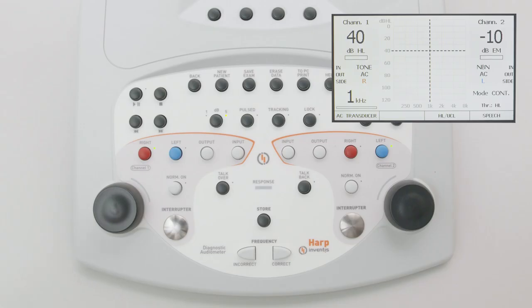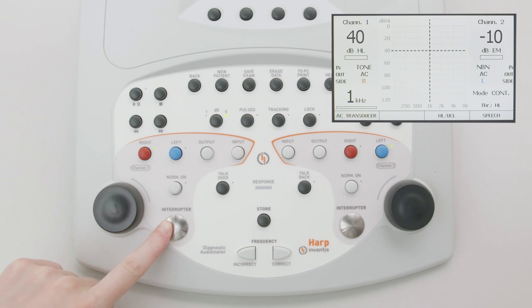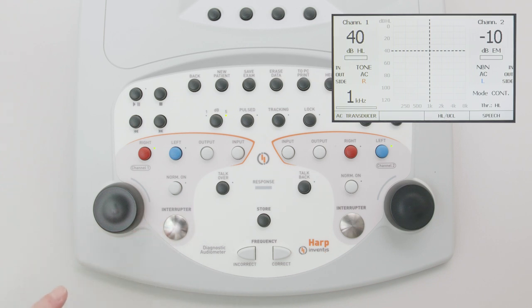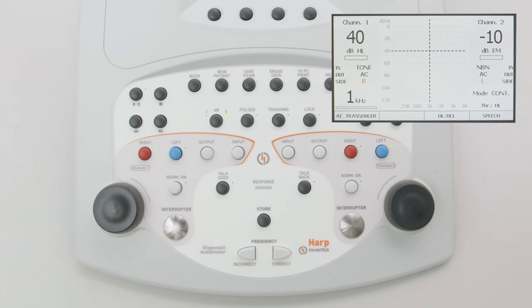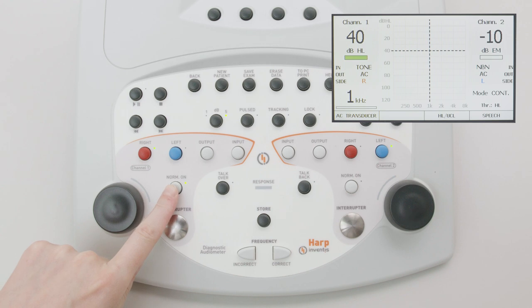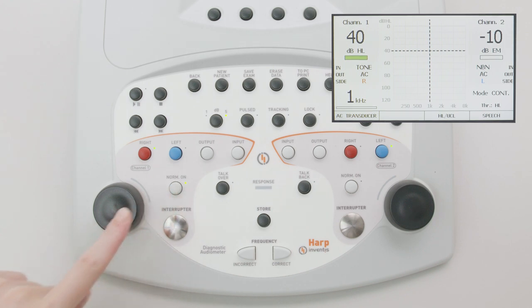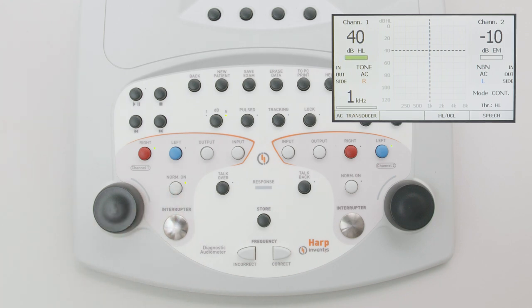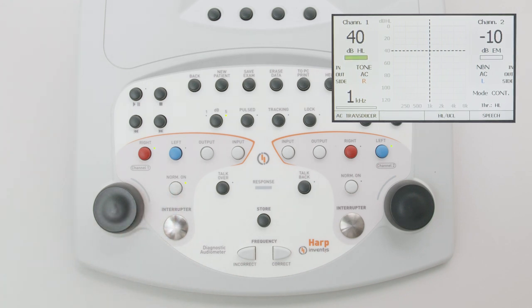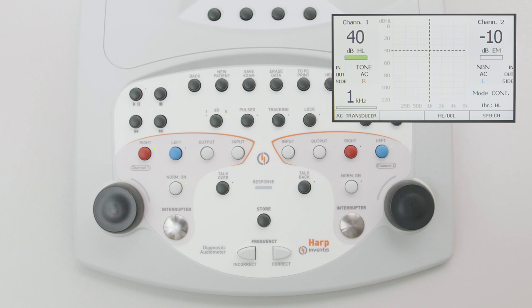Simply press the interrupter to send the stimulus through the respective channel. By pressing the normally-on button on the channel where the green indicator is lit, the relative output is permanently activated.